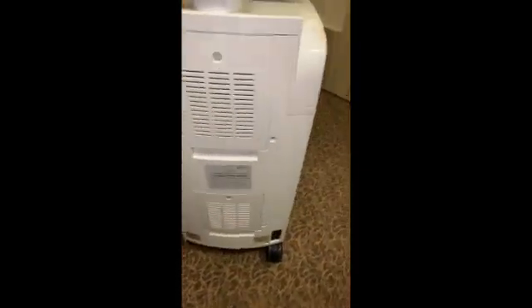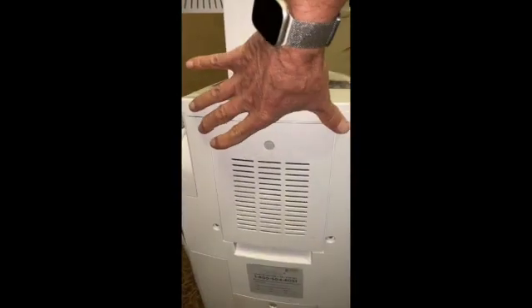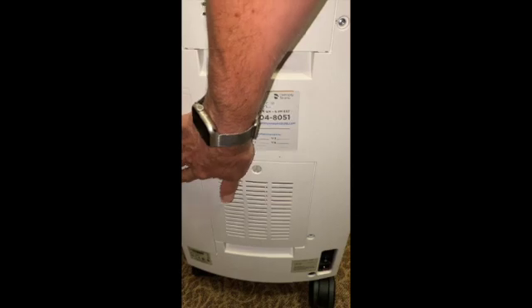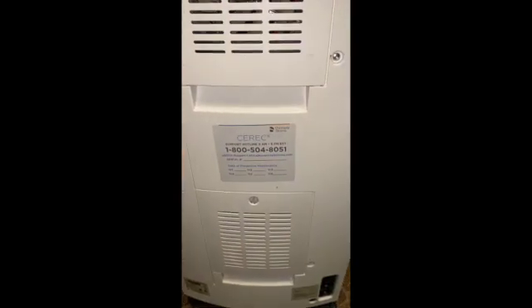These units have multiple screws. When we take this cover off, there's going to be two screws here, two here, one long screw with a nylon washer, and then inside this battery chassis there's also a screw that's medium length. Unfortunately, this unit's missing that medium length screw. But that'll be taken off with the T20.